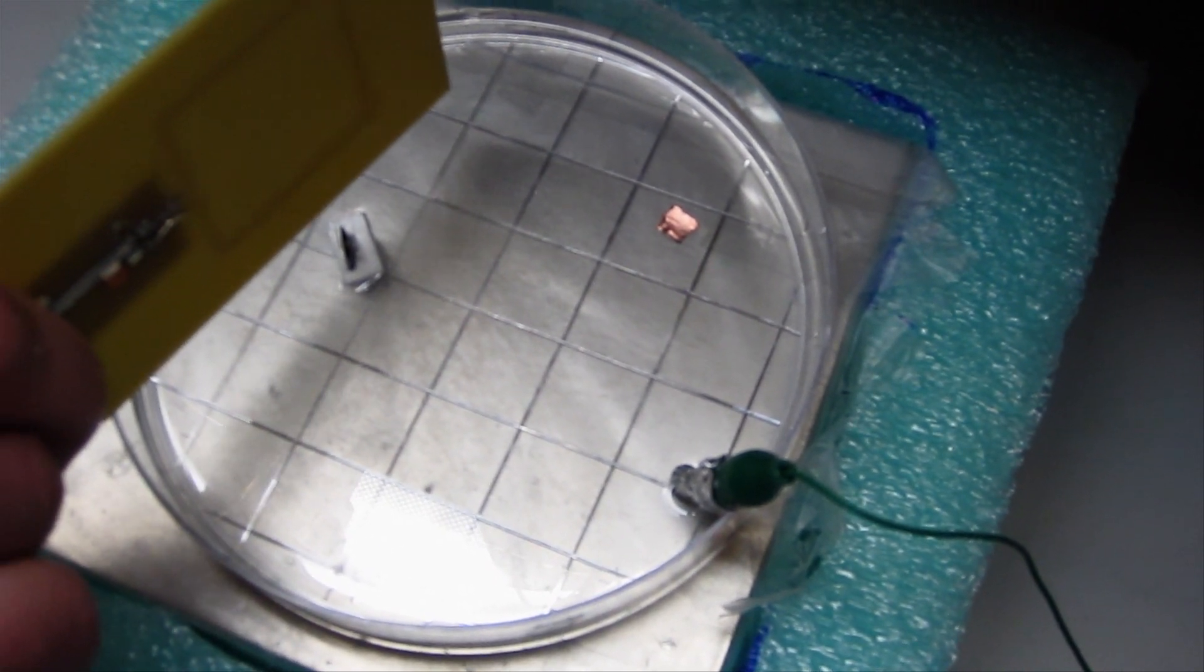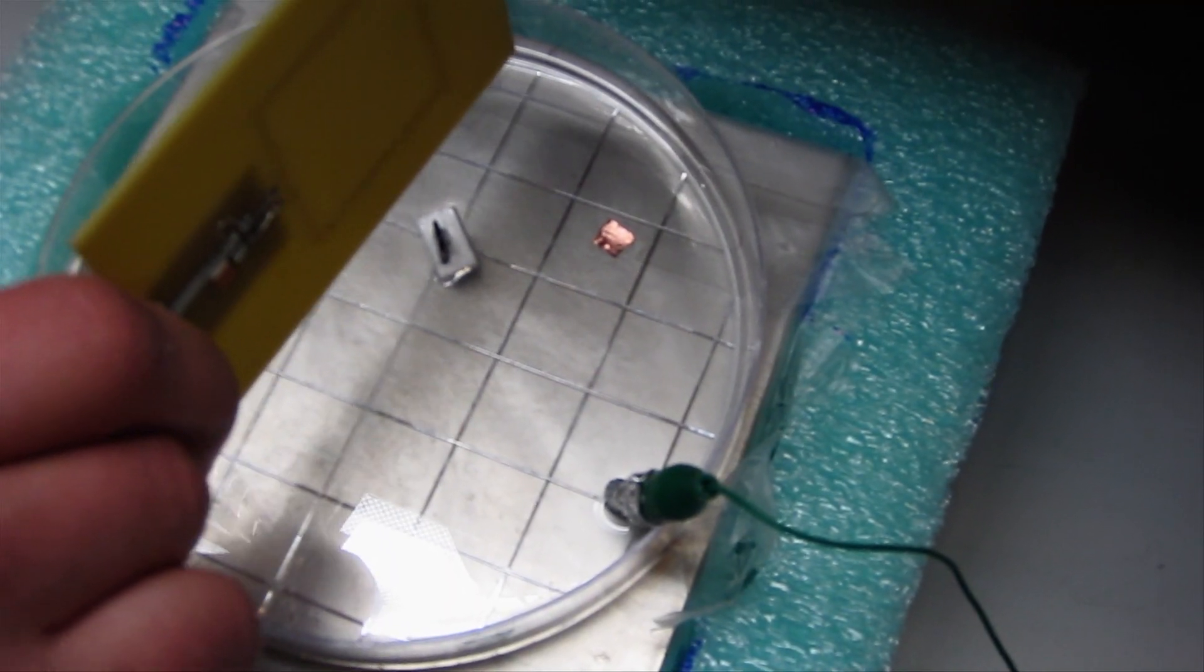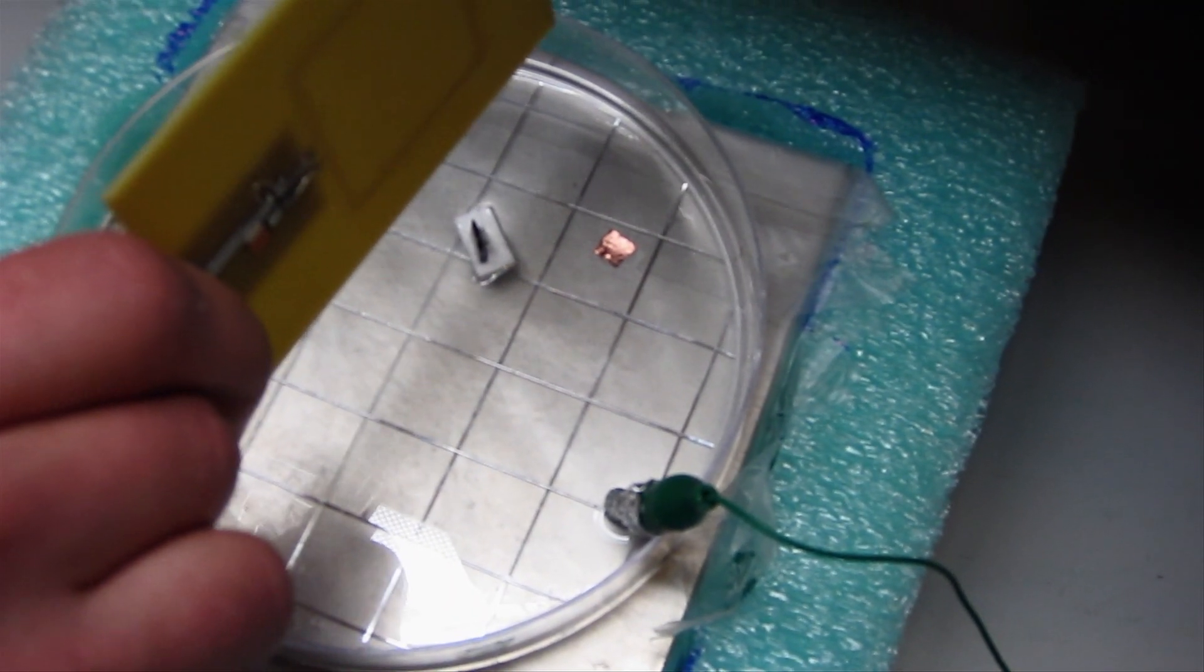We are able to turn the implants to a certain direction to steer them by controlling the current on the different electrodes of the implant.